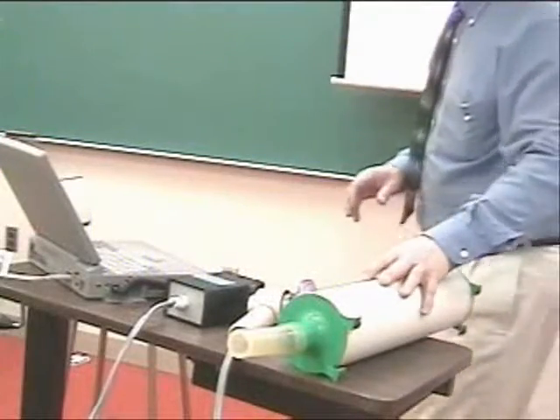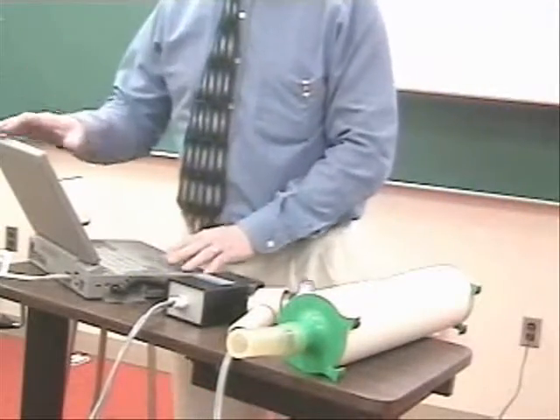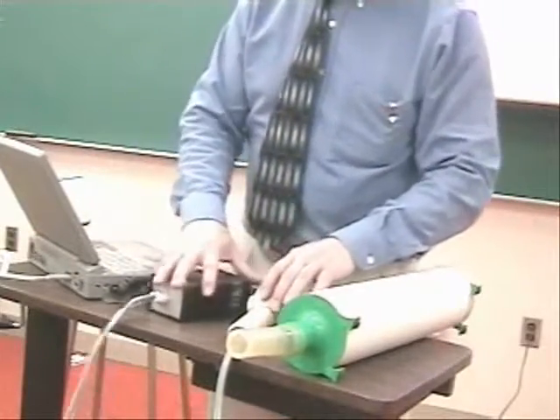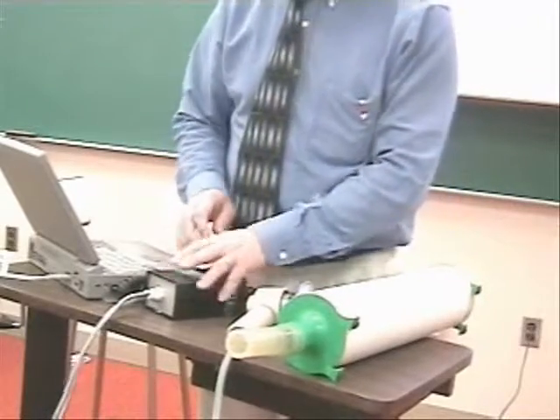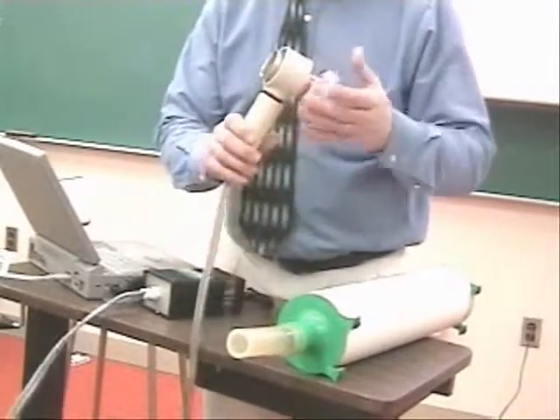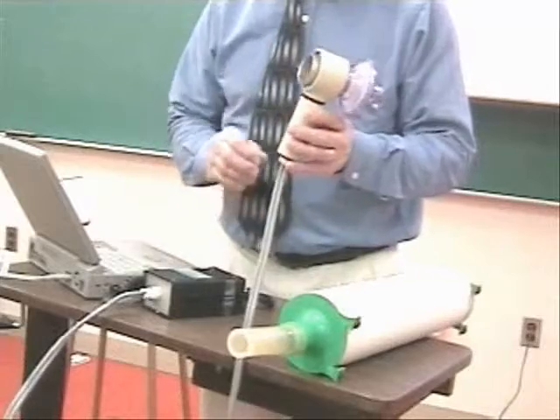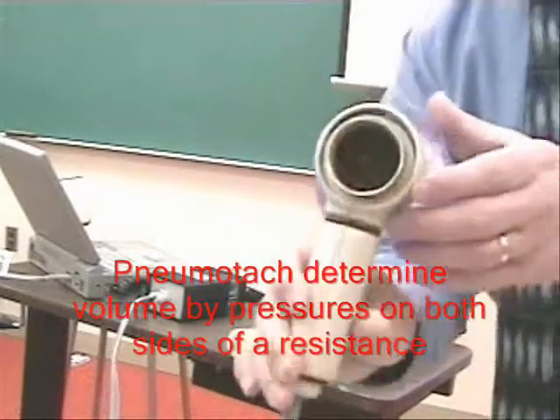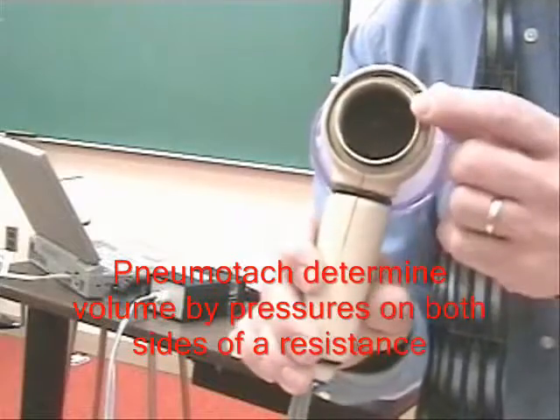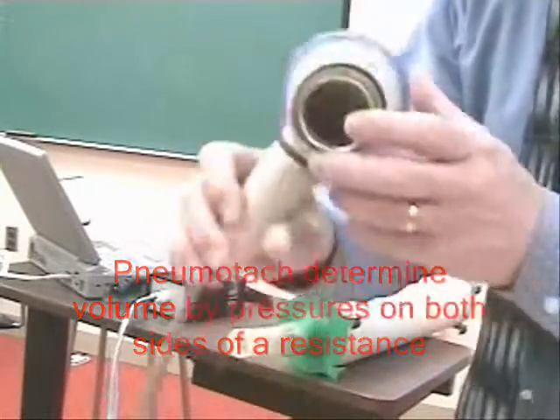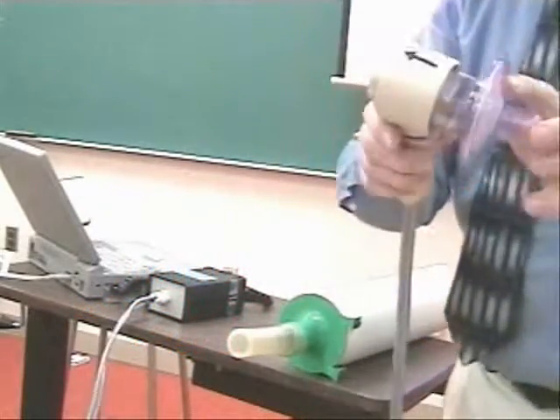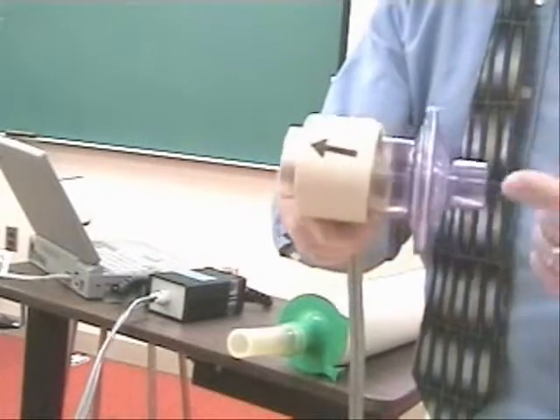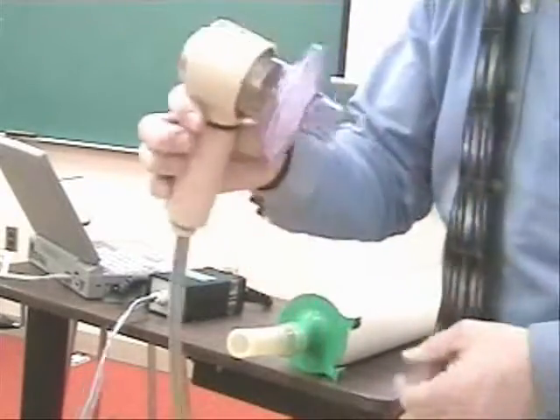On the table we have the pulmonary function unit, a laptop, the translator or connection for the spirometer unit, and this is a pneumotach. You can tell it's a pneumotach by the coils inside. This is the mouthpiece; you can see the directional flow. You are going to exhale in this way.